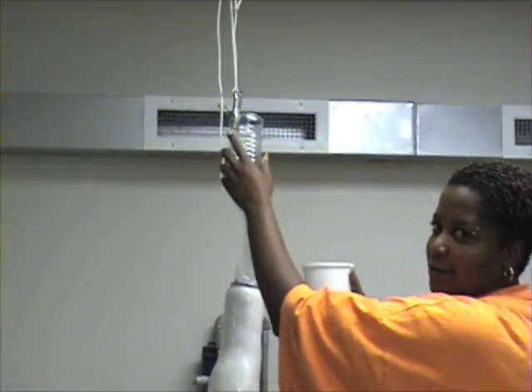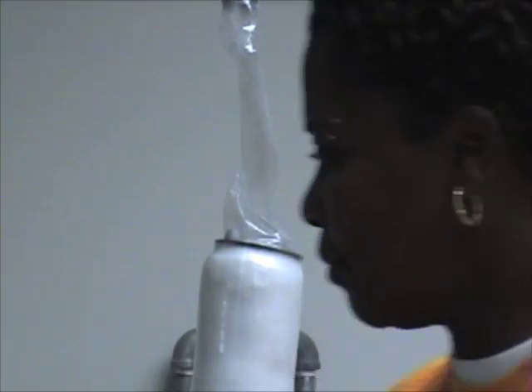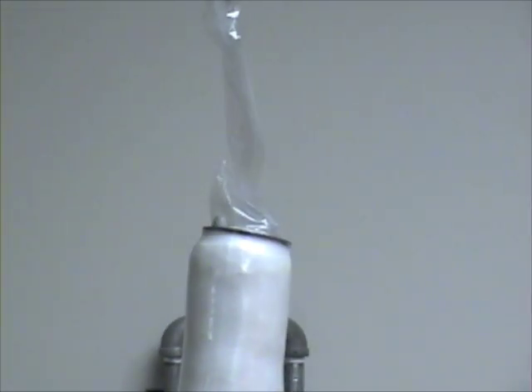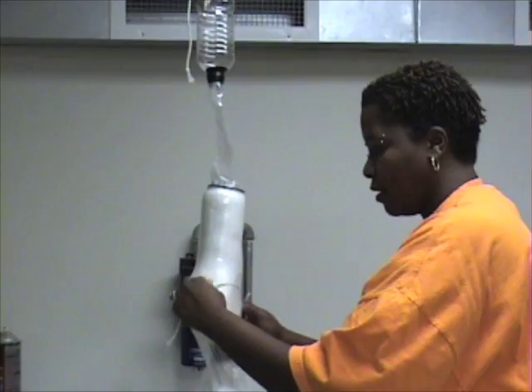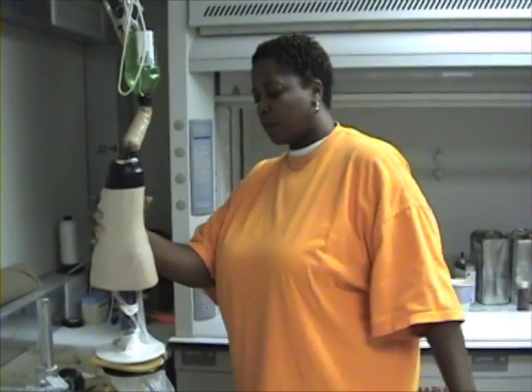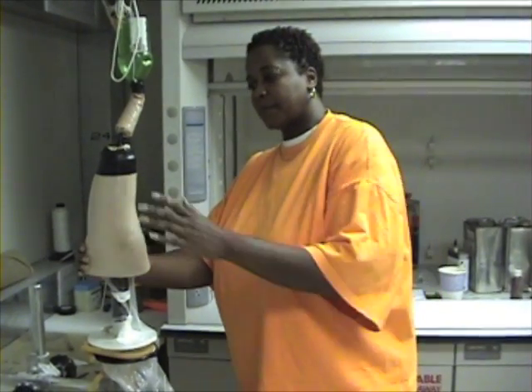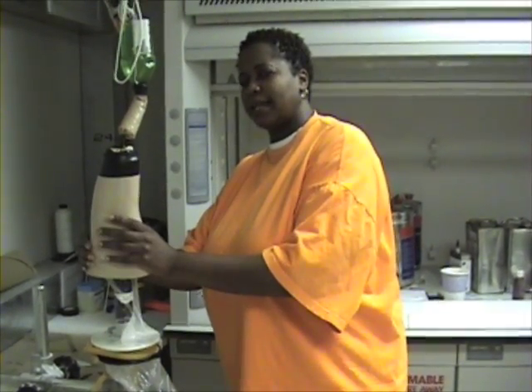We'll pour the laminate here. When you pour the laminate down, you grab a string and you can string it in. And this is what it comes out to be — all laminated and nice. What this will be used for is for a patient that is a below-knee amputee.